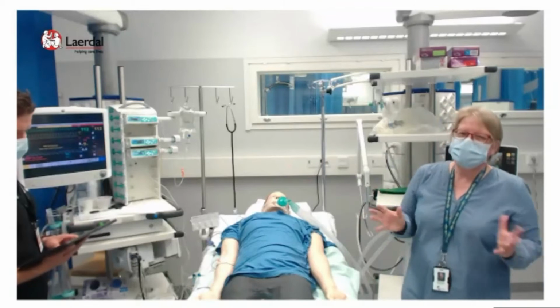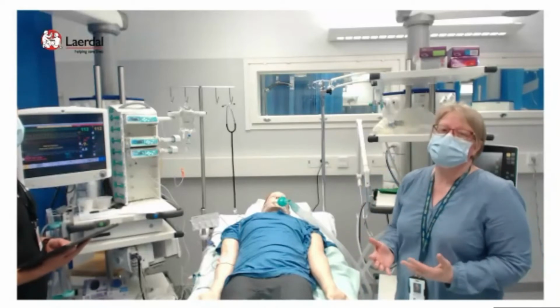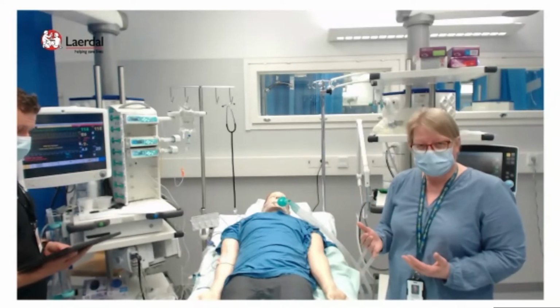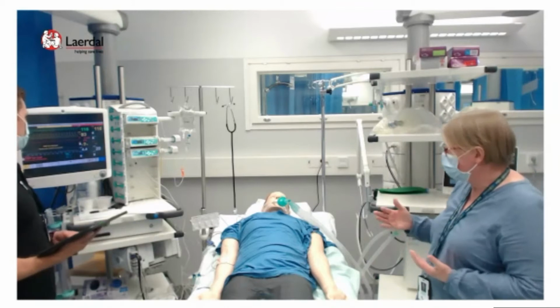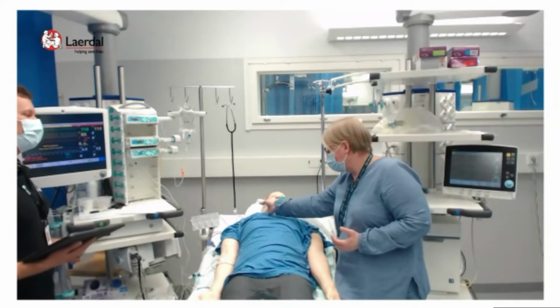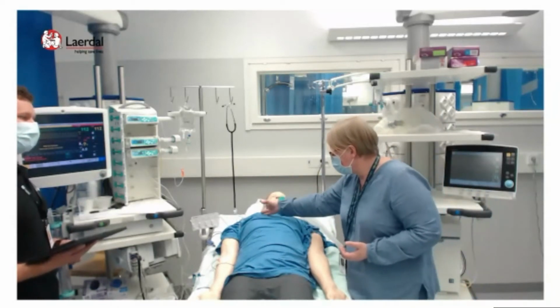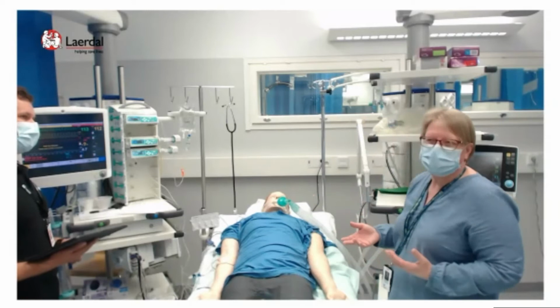And now we can have a discussion about oxygenation problems, like the shunt which is behind all this. So what is the reason for the oxygenation problem, and what would you do if you have this kind of problem? It is important to always check that the delivery system is okay. Is the tube in place? Is the cuff filled, or what is the cuff pressure? We are measuring cuff pressure continuously, not in this simulation, but usually on a normal patient. So if that is okay, is there any problem somewhere else?